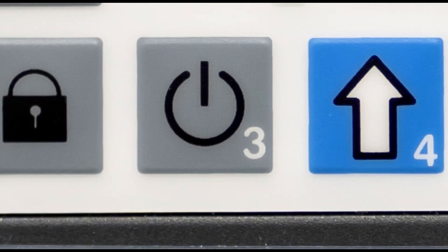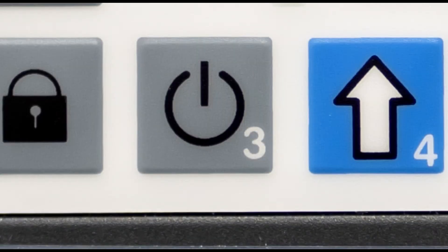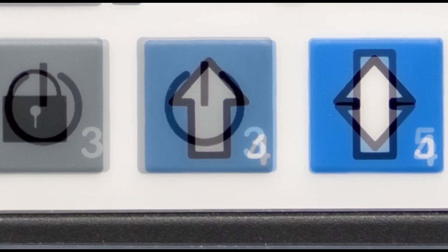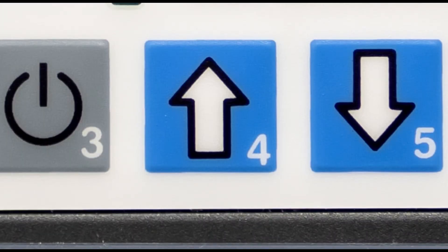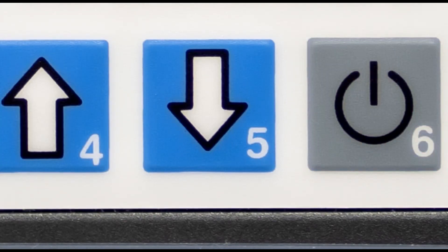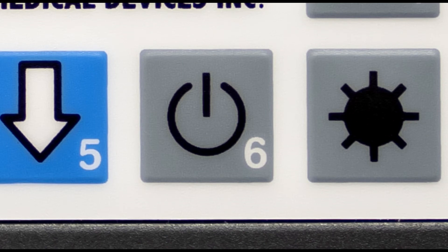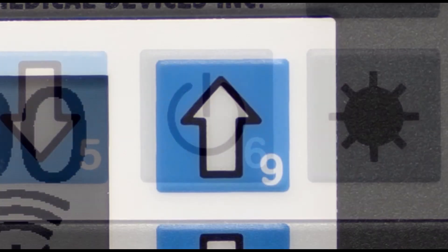Key 3, when pressed and held for 2 seconds, turns the left side output on or off. Key 4 increases the respiratory rate. Key 5 decreases the respiratory rate. Key 6, when pressed and held for 2 seconds, turns the right side output on or off.